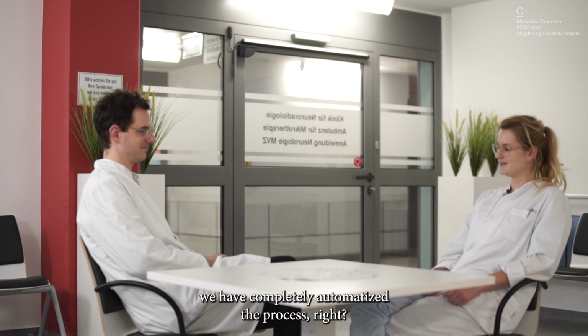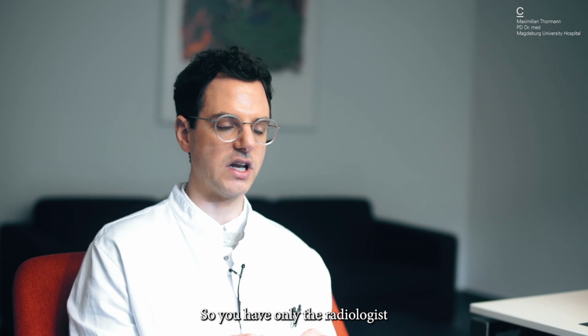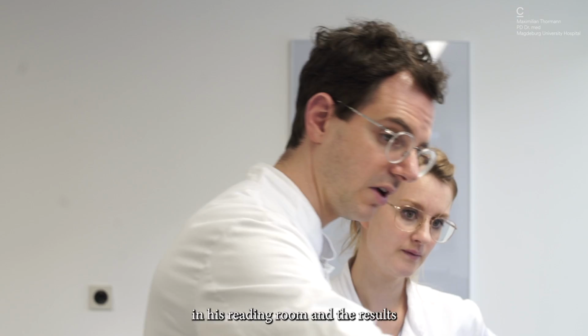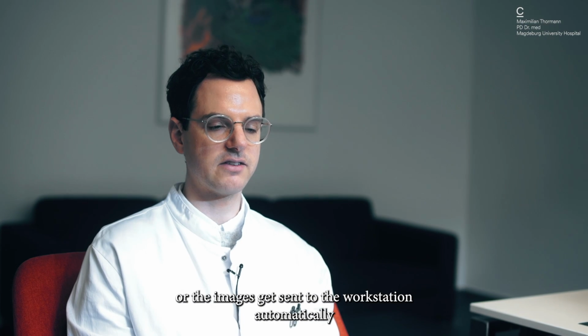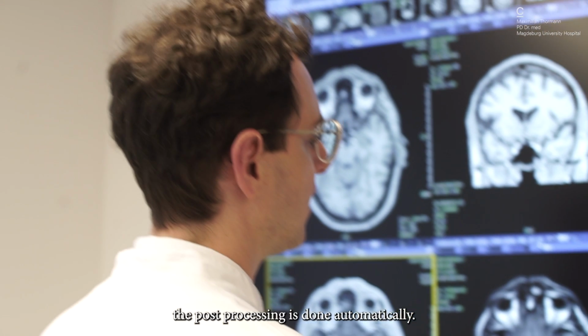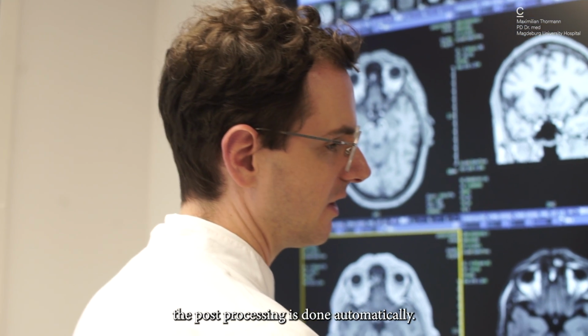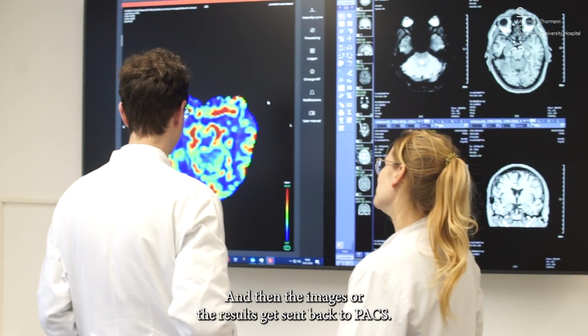We have completely automatized that process, right? So you have only the radiologist in his reading room, and the results or the images get sent to the workstation automatically. The post-processing is done automatically, and then the images or the results get sent back to PACS.